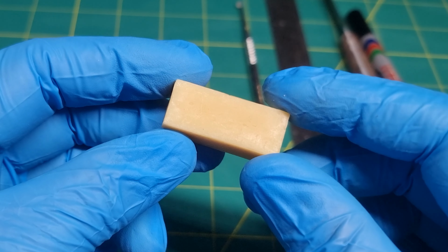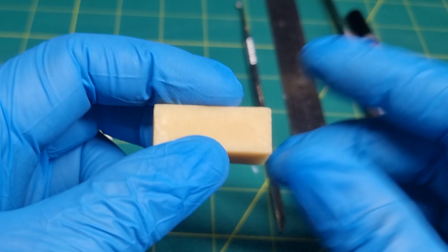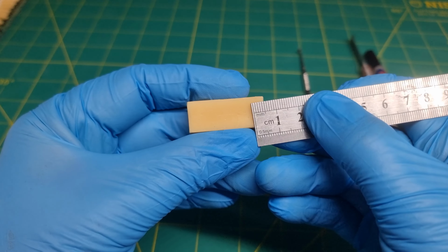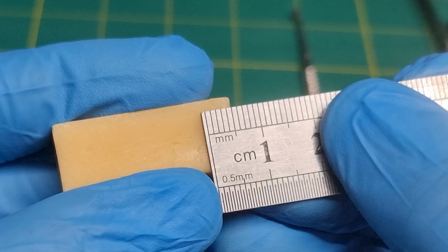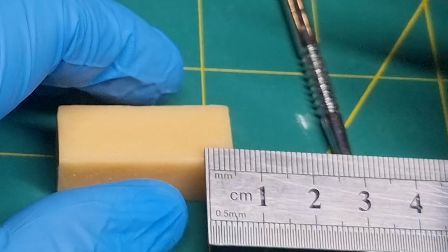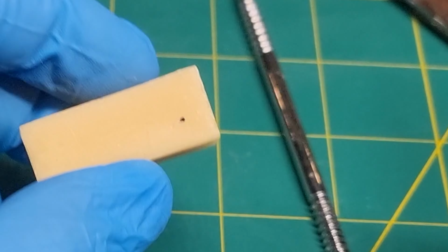This is our wax block. First, you all need to measure 0.5 cm or 5 mm for the base of the block, plotting it using a ruler and a marker. Start by marking a horizontal line. This will help you accurately plot your measurements on the wax block.